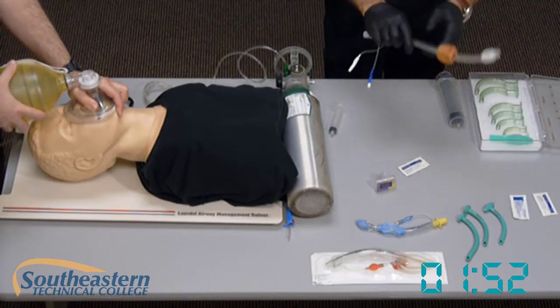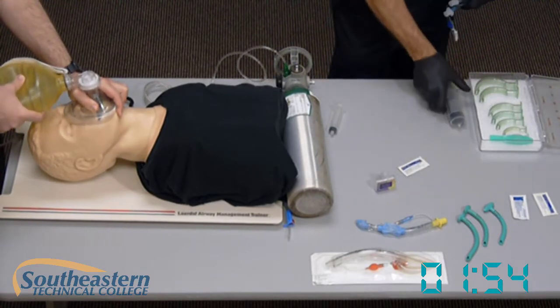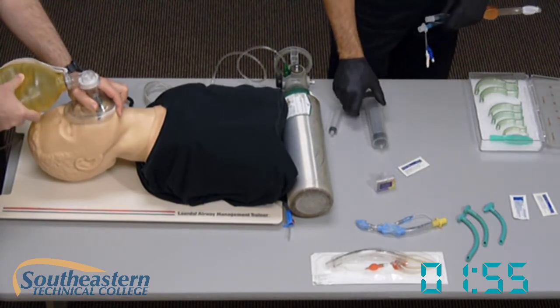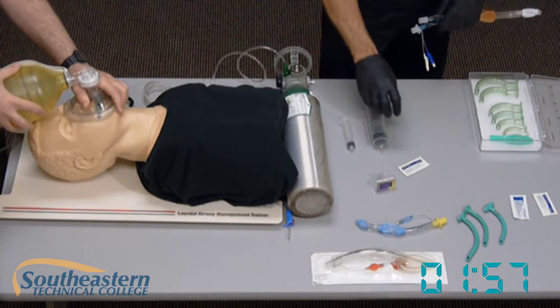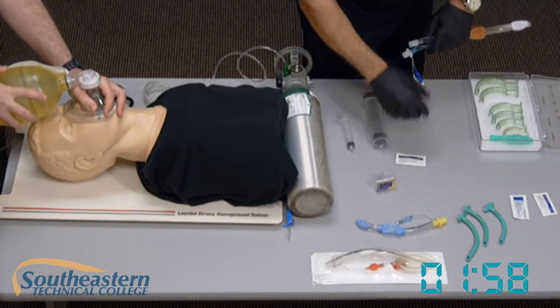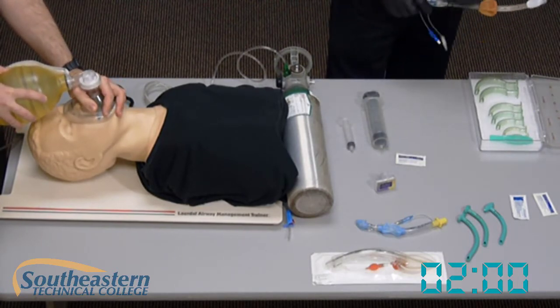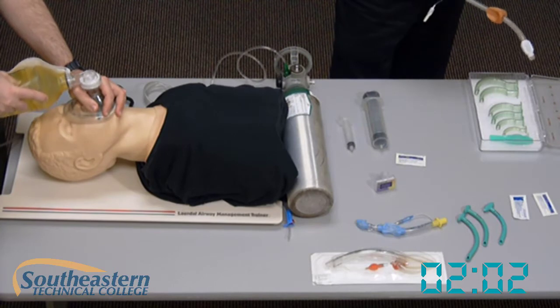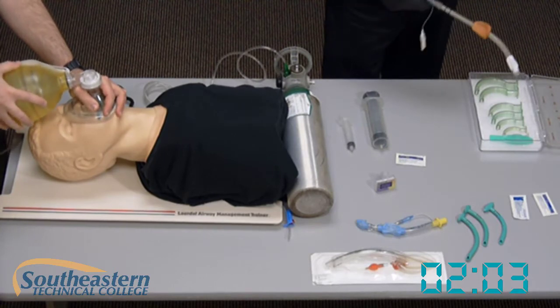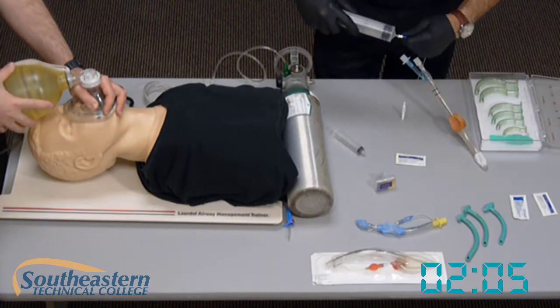Checking my equipment, making sure I've got my combitube, a 100 milliliter syringe, a 15 milliliter syringe, and my KY jelly. I'll attach the 100 milliliter syringe to the number one port — the blue tube.